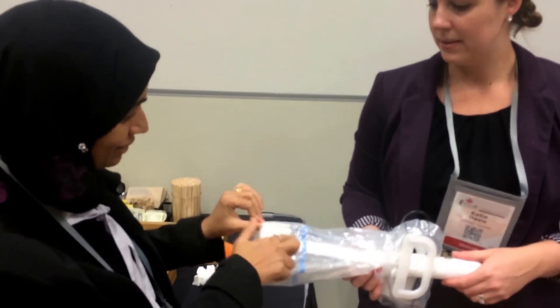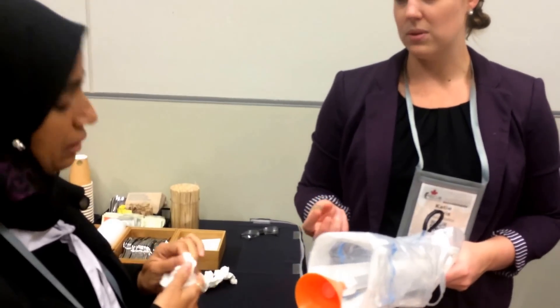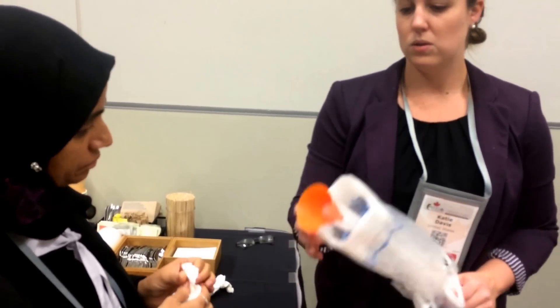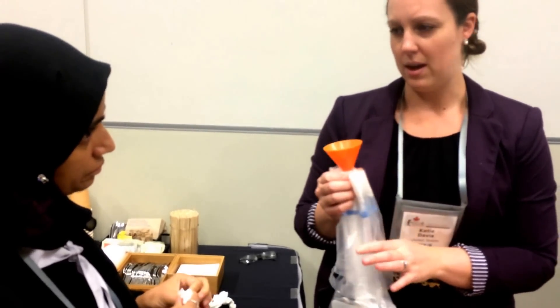This material is changing — it will be more like a latex, almost like a glove. So it'll be softer and you won't have these corners like you see here. Thank you.